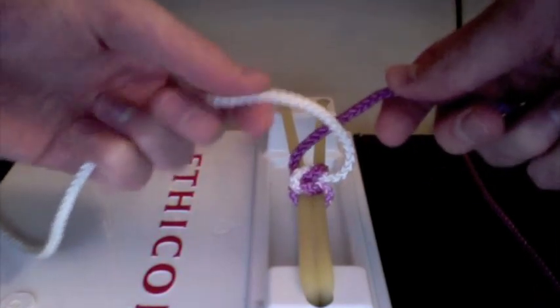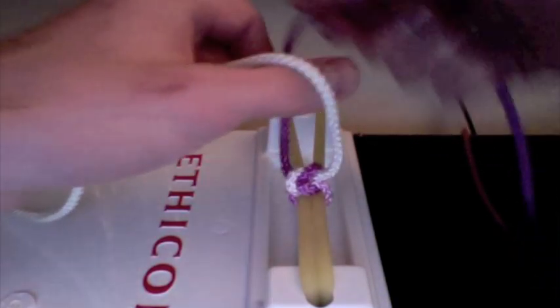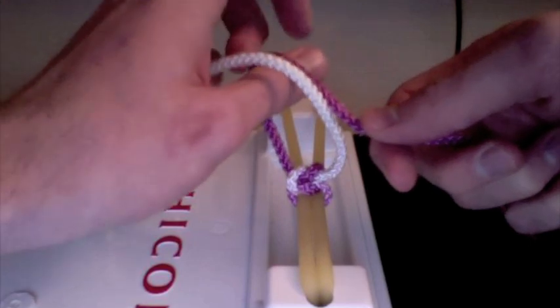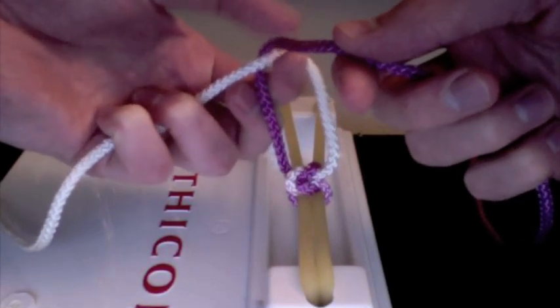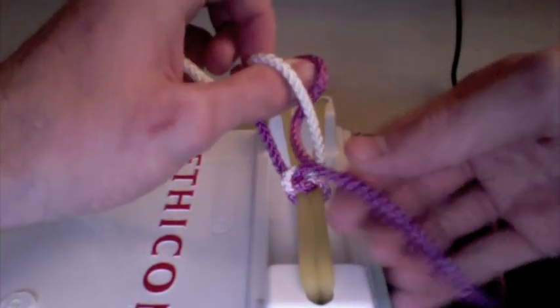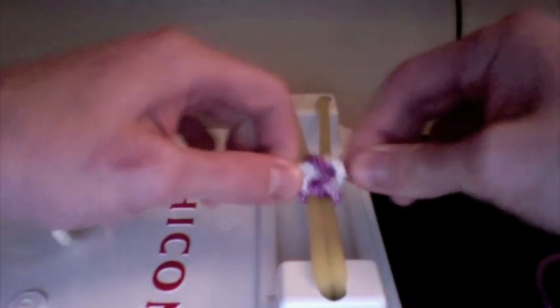Going through it nice and slow: you've got your white strand going to the left over the top of your thumb. You're going to wrap the purple in the opposite direction towards your right. Make your little bird beak, rotate him out through the hole, and grab the little purple worm outside. Then drag that worm back into your little nest. On the other side, grab him and tie it down nice and tight. You can make that nice and straight.